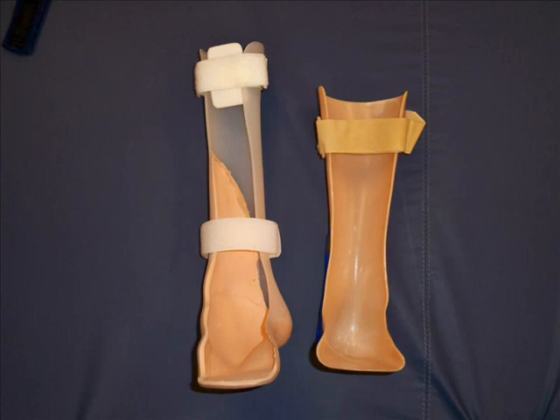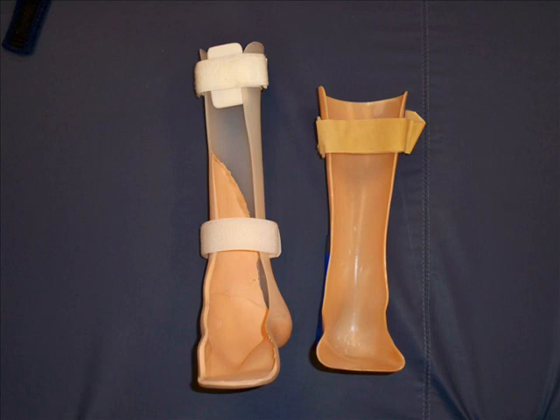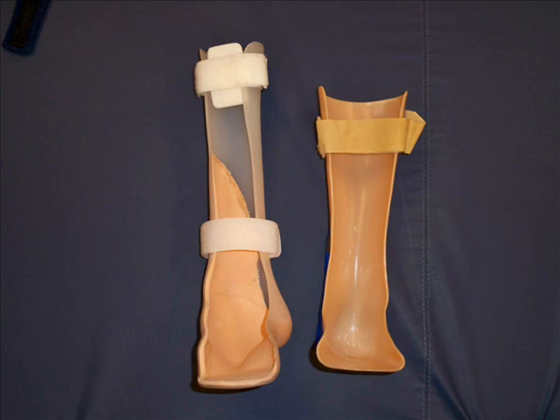These AFOs are molded from rigid plastic. The one on the right is an off-the-shelf AFO that is adjusted to fit the patient — the plastic is heated so it can be pushed in or flared out a little to fit precisely. Ready-made AFOs may not be adjustable for every patient. The AFO on the left was probably custom made; you can see the calf part is very small due to significant atrophy, and the inside has been built up with foam padding to distribute pressure better.